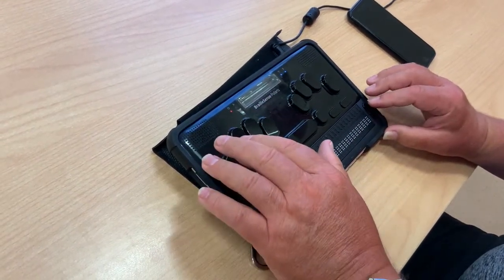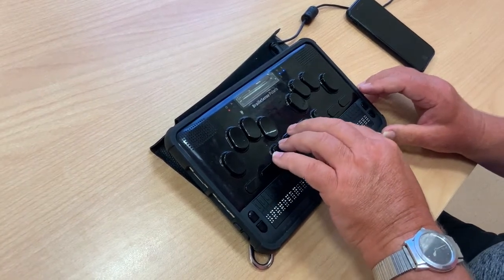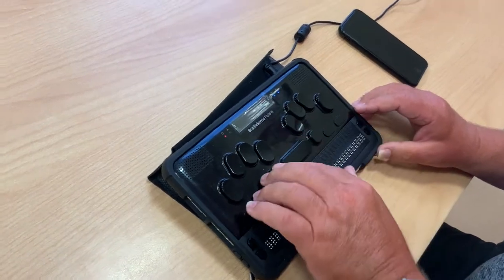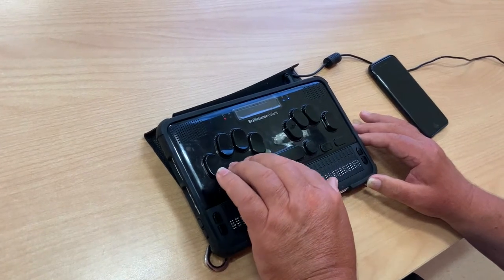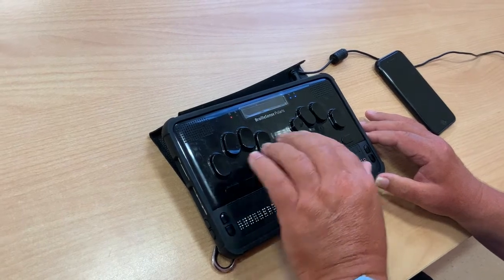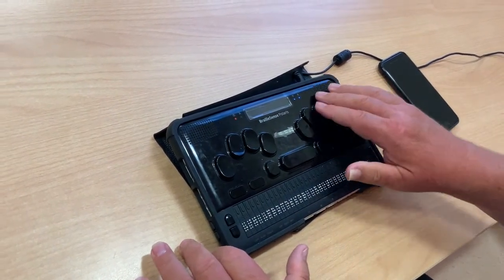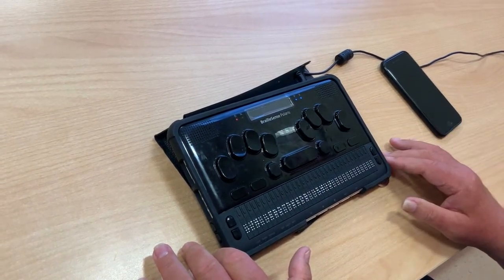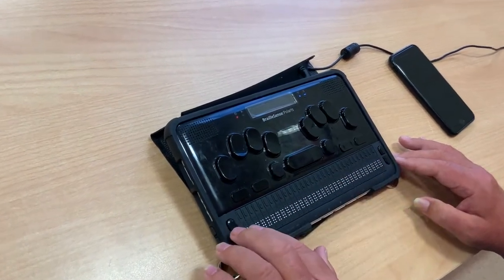If I want to move back through the menus, I press dot seven: Extras, Web Tools, Organizer, Media, Email, Notepad. I can move forward or backwards through my menus using the buttons to the left or right of the space bar. To enter a menu option, I press dot eight, which serves as the enter key.